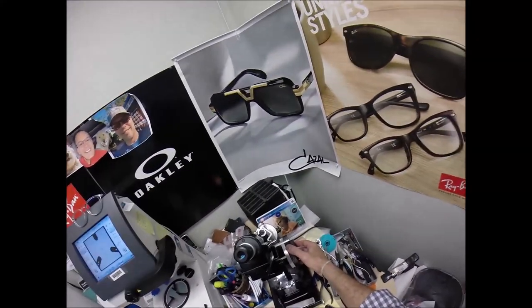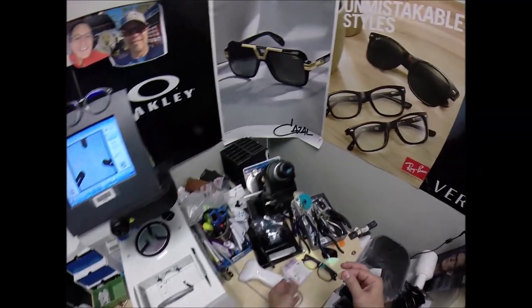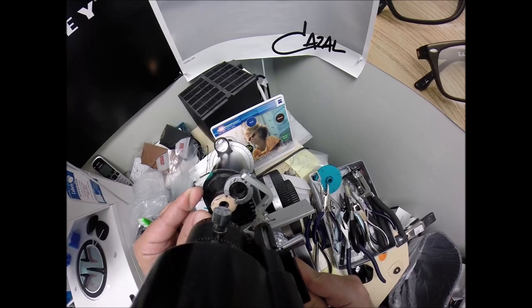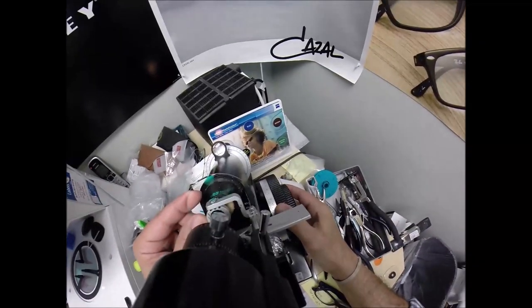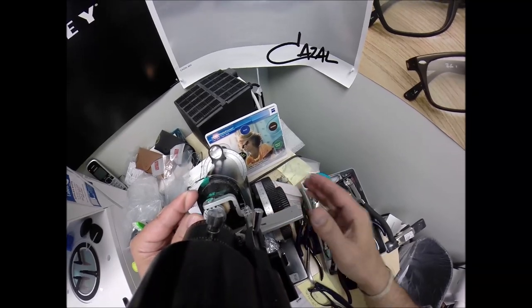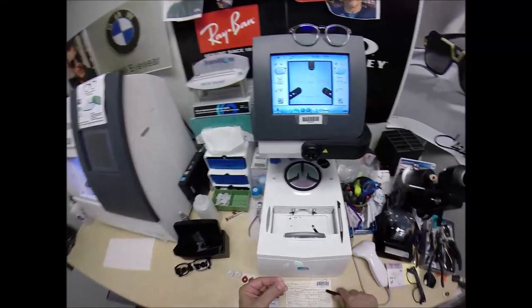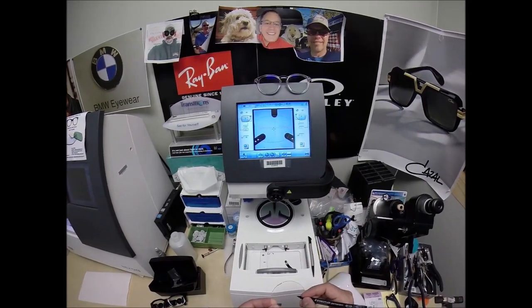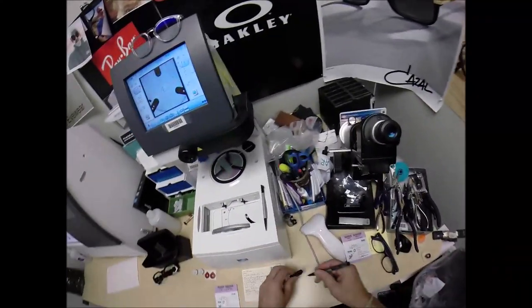Put the power drum on plus one and a quarter. Take the lens out of the protective sleeve, put the lens in, rotate it so the spherical component comes into view first. Check your astigmatism correction — yeah, that looks good. I'm going to put three dots on your lenses that are too light to see, so I'm going to darken them. One, two, and three. Going to put the block on here for the right.